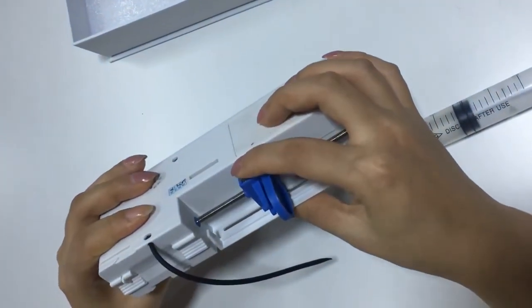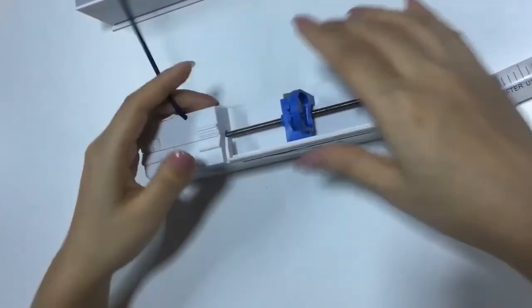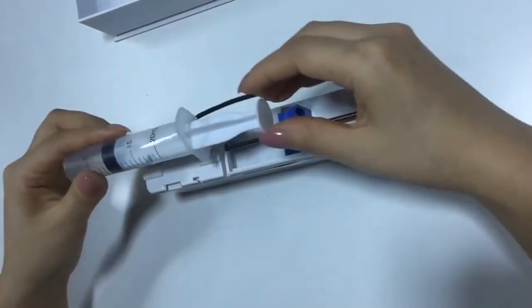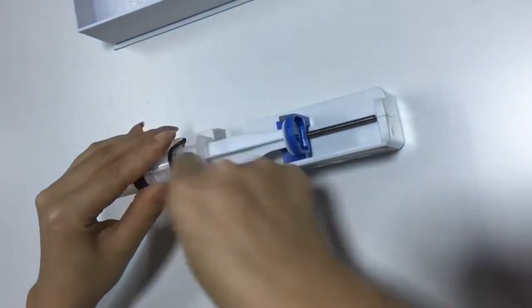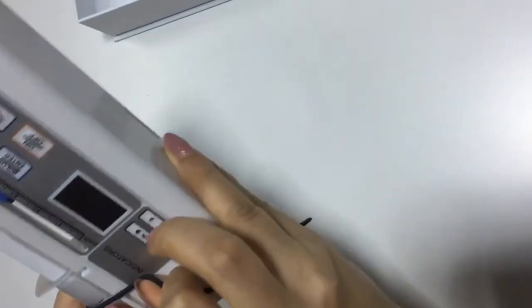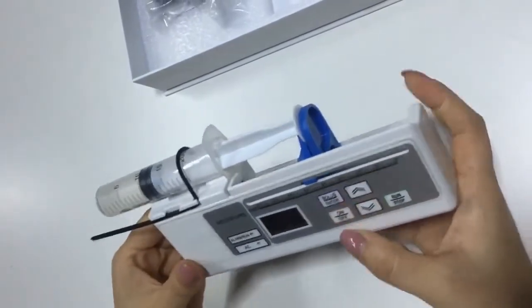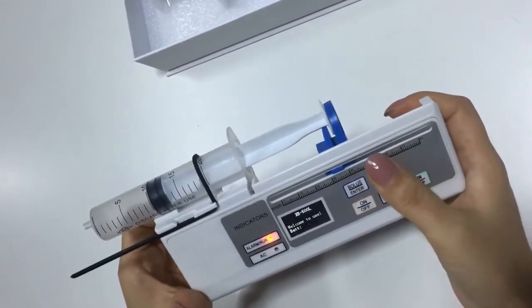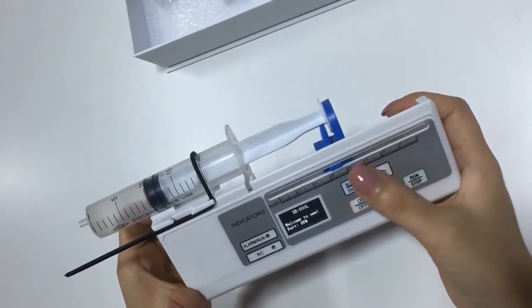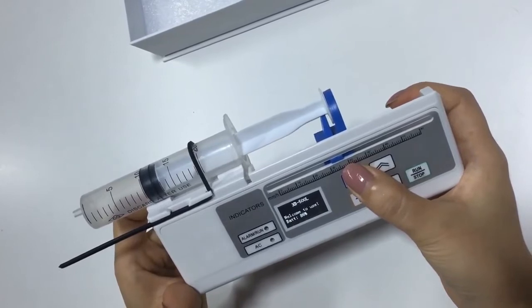Press the button to move. Turn on the pump. Click Enter to send the parameters.